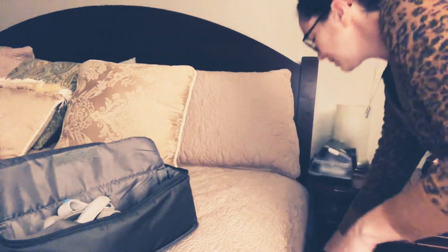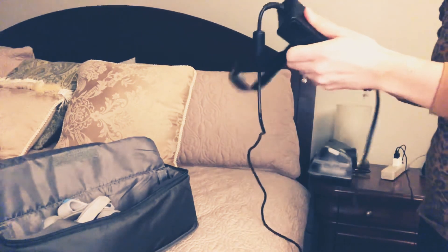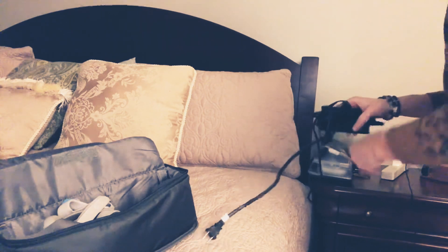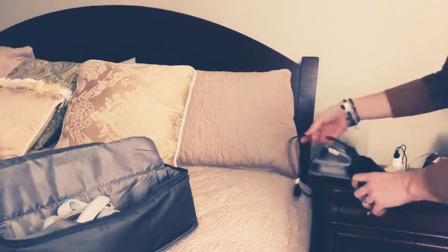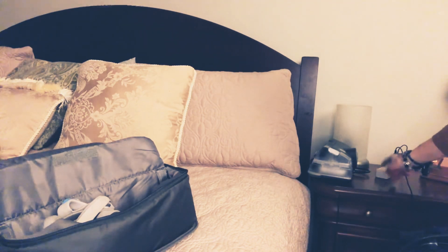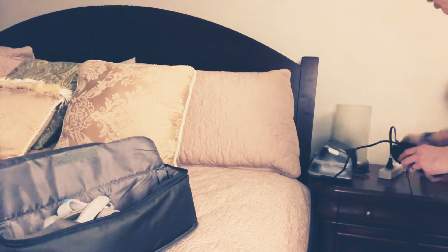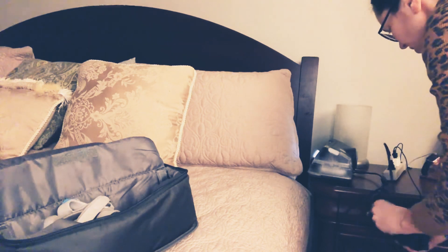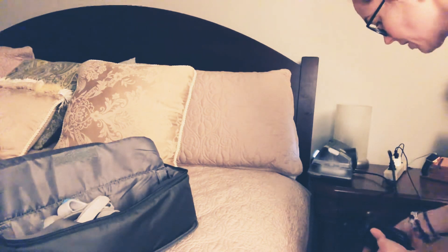This power block is always gonna sit on the ground, and I do wrap up the excess cord so you don't have it all loose. I recommend you just take it and kind of wrap it up so you don't have all this excess power cord to be tripping over — you can use the velcro strap to wrap it up. If you don't have a plug close by, I do have a power strip here, but you don't want to have a lot of things plugged into your power strip — one or two items at most.